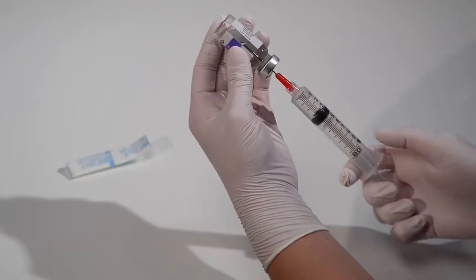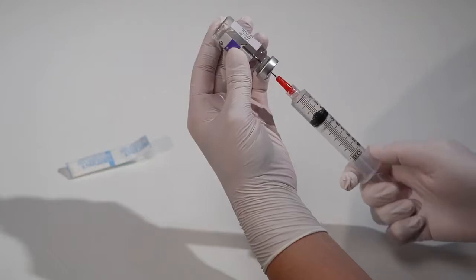Draw back the syringe plunger to the correct dosage. This particular technique may vary according to your region, so be sure to follow your facility's customary practices.